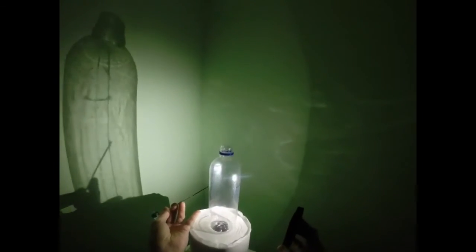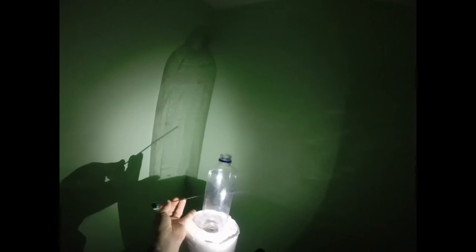Now we're going to go through three different situations. Situation number one: my needle approaching midline. Number two: it goes away from the midline on the side of needle placement. And situation number three: it goes away from the midline on the opposite side. Let's see what happens.